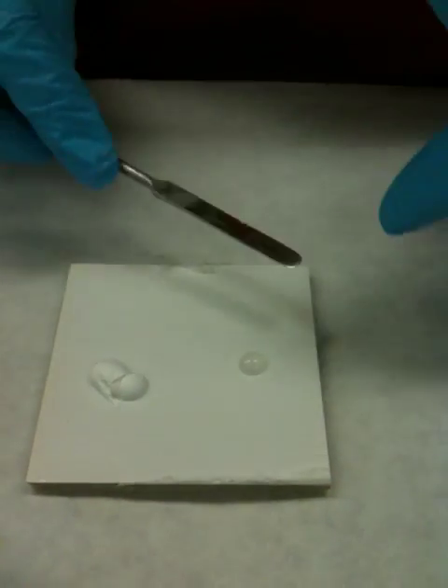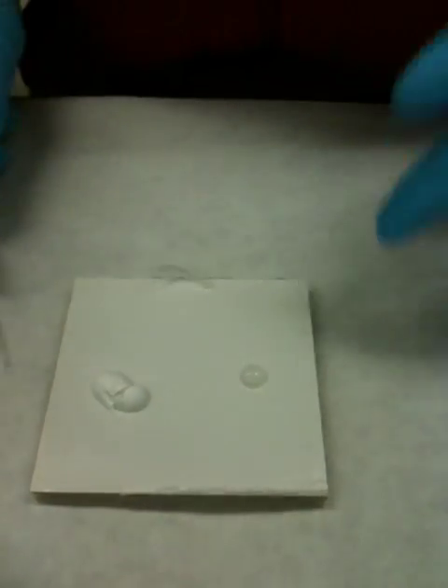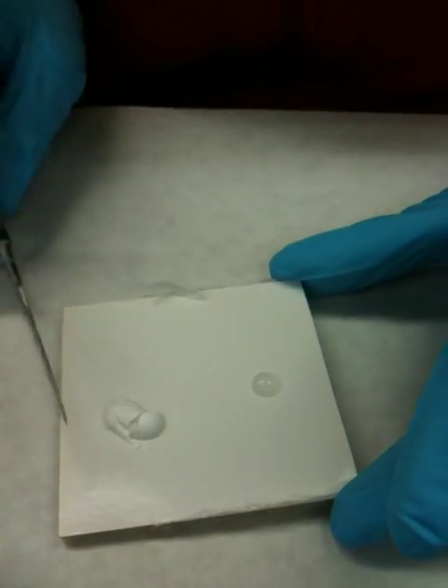Don't be scared with this — mix it immediately. This one's kind of hard to mix, like they don't like to mix, but mix it — the whole scoop.